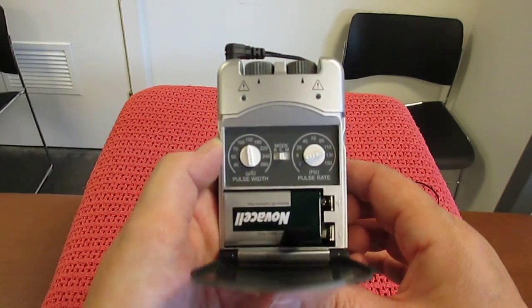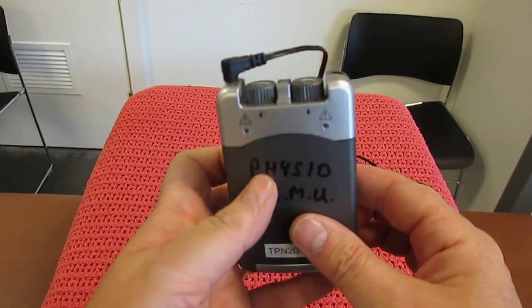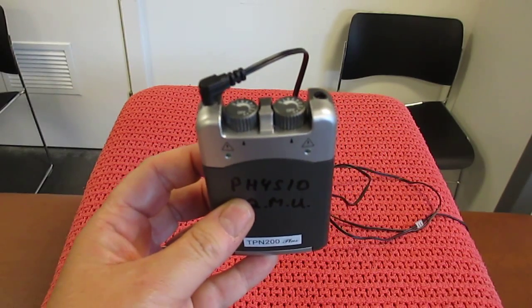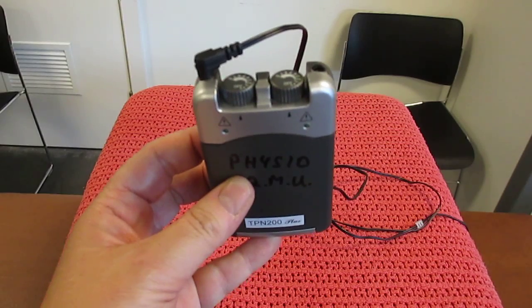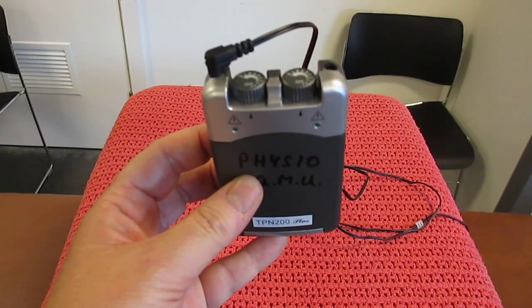You'd then close that up and provide an explanation to your patient on what sensation they should feel and what to report.